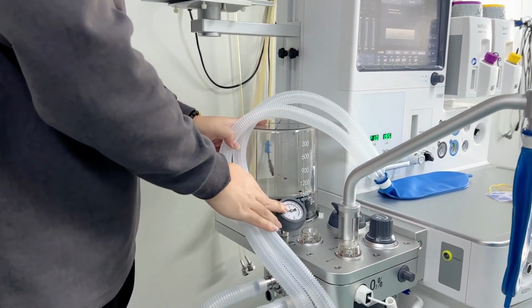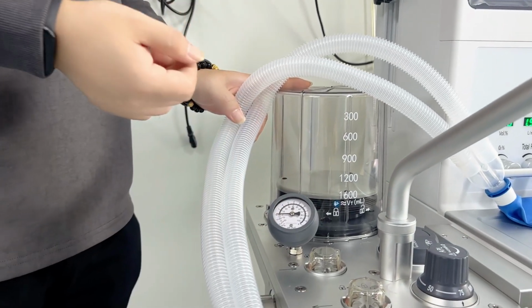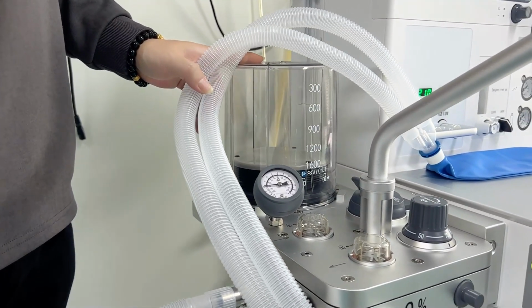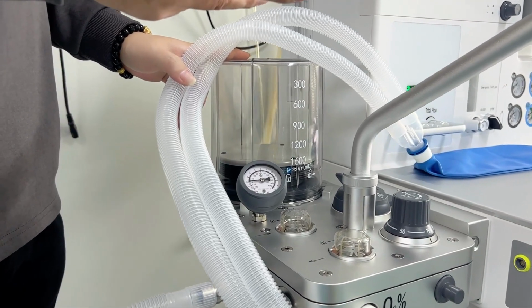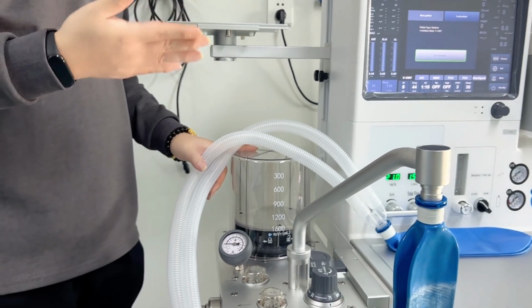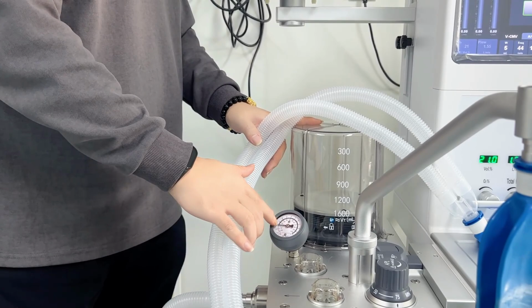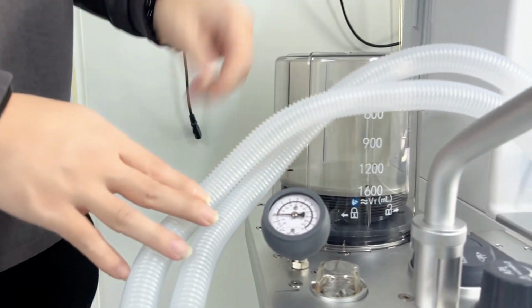This one is a pressure gauge, the total gauge. Usually we can check the inlet pressure with it, but sometimes we only use it, for example, if there is some leakage, we have two choices. As you see by the inspection interface in the software, we already have the leakage test. But sometimes if you prefer the manual test, then we can use this gauge. And if the gauge reading is not getting lower, then it means there is no leakage.